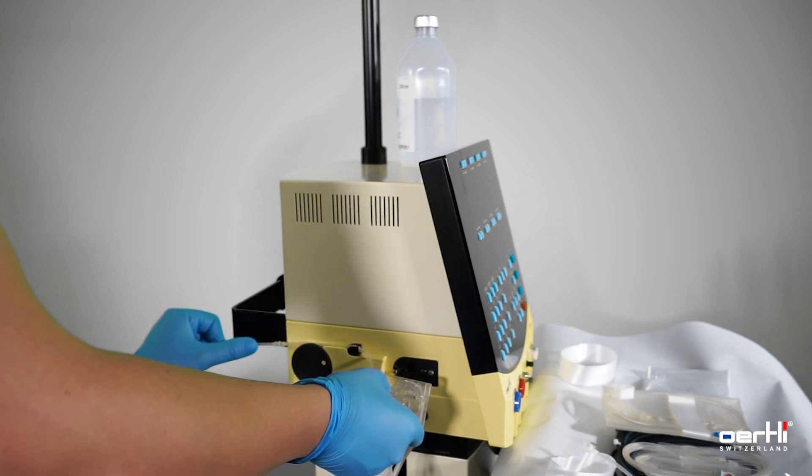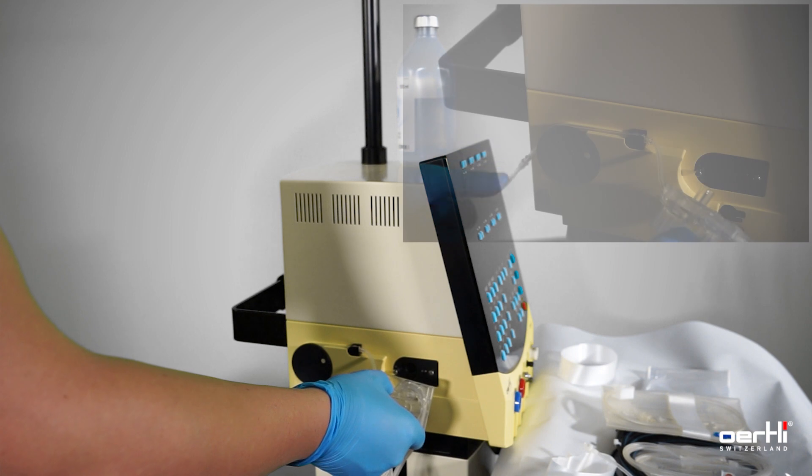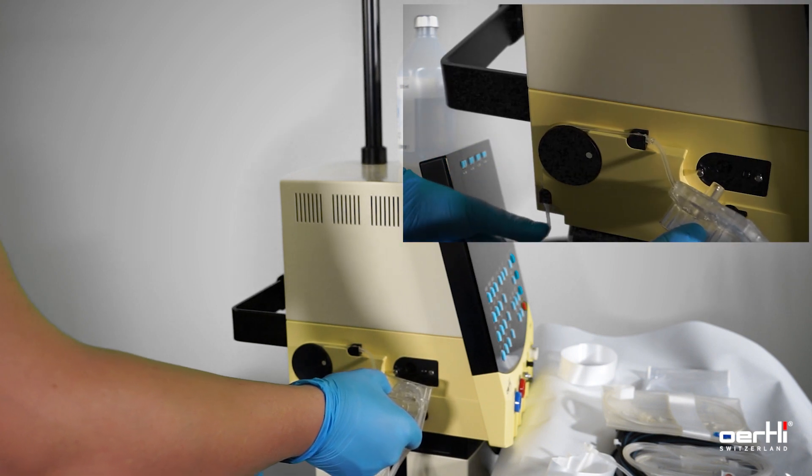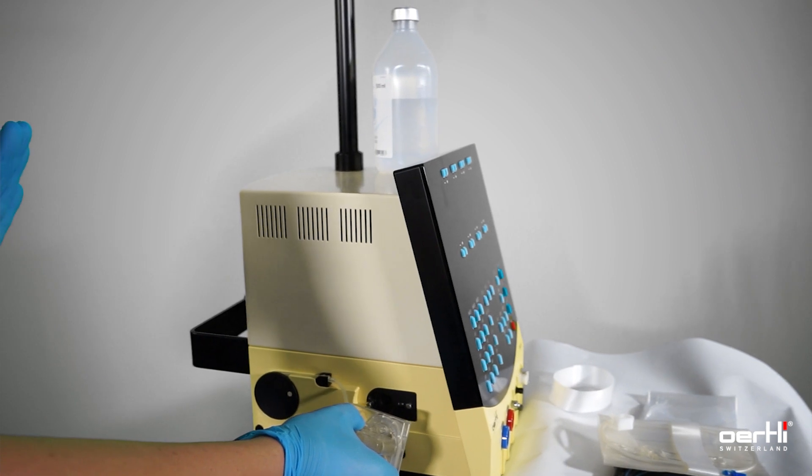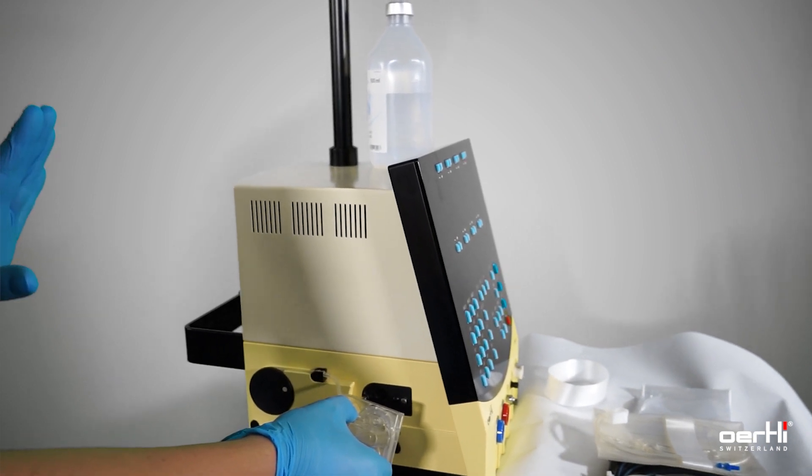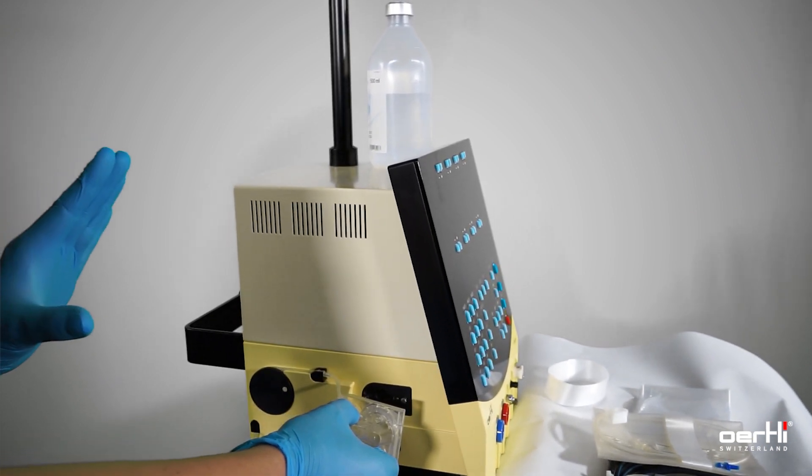So by doing so, you cannot touch the device by accident. Finish it off here, guide the tubing into the second black part, release the tubing over here. So it's not sterile anymore, but you don't have to touch it anymore.